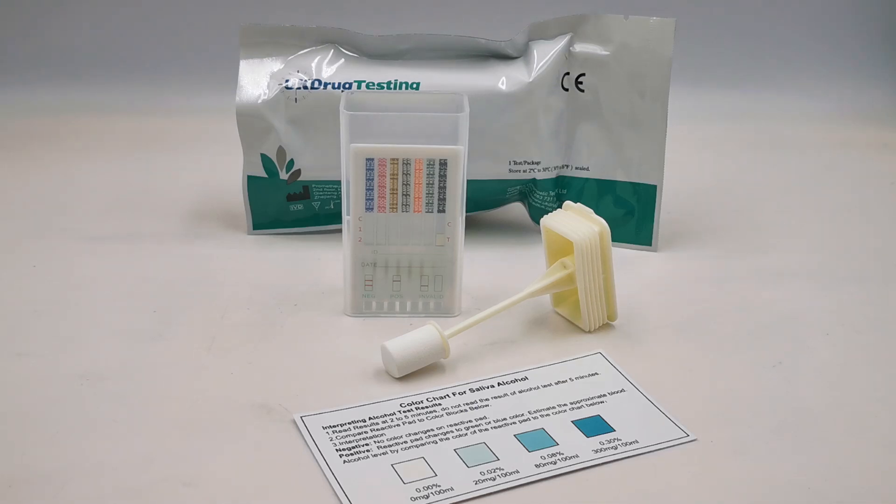Welcome to this combined Valumet and UK Drug Testing product demonstration video for the new UK Drug Testing Swabcube. This is a six panel drug test plus alcohol, so it screens for seven common drug groups in a single saliva sample.